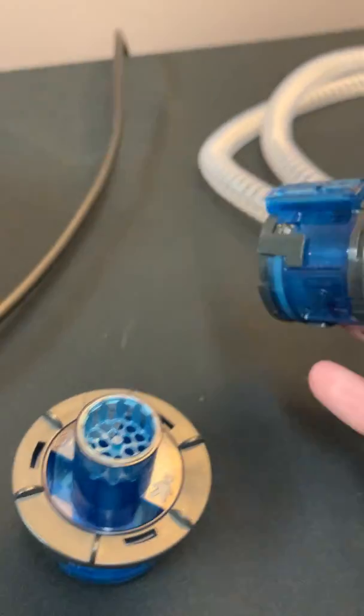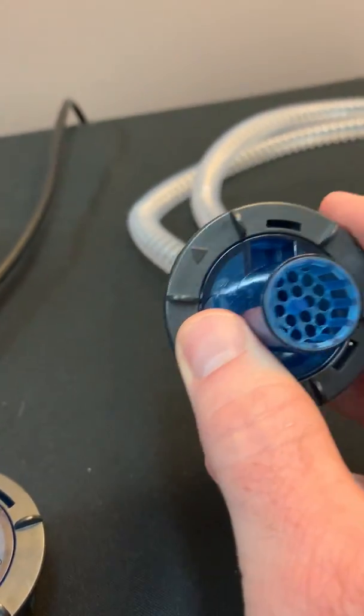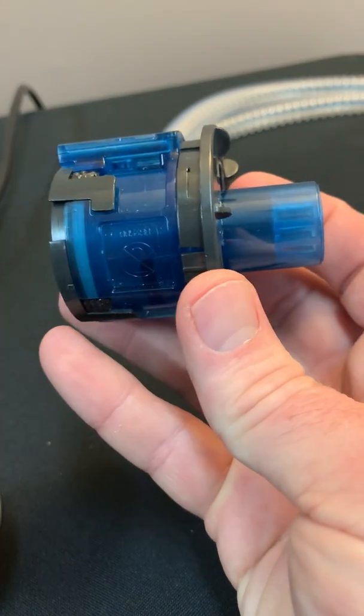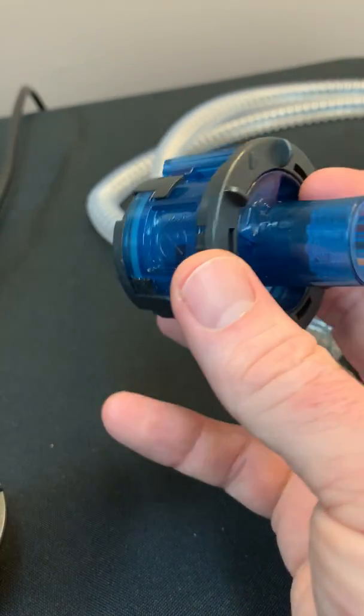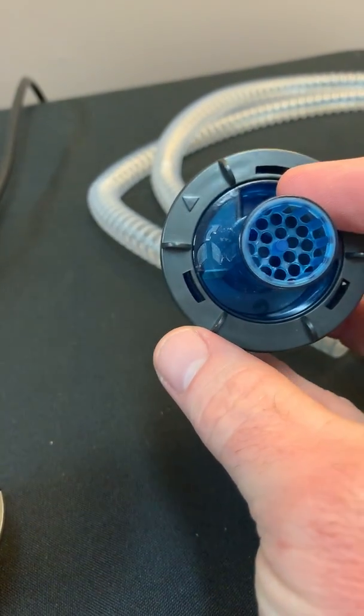These valves, everything is measured within the valve. Any water that happens to move into these valves will get channeled away from the ventilator.